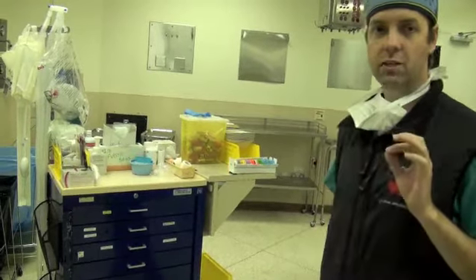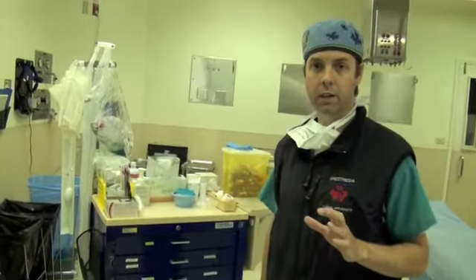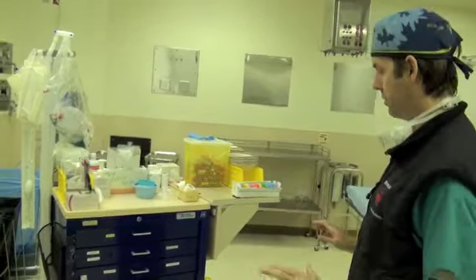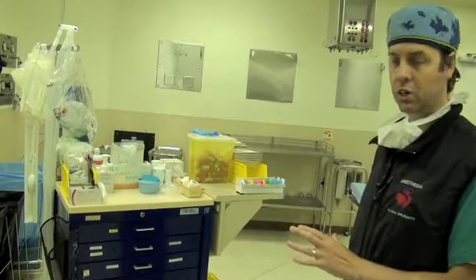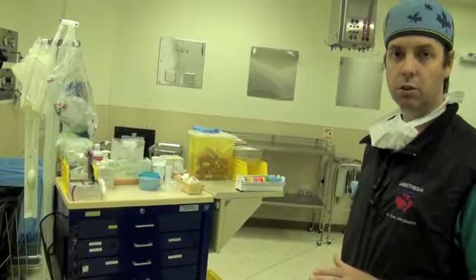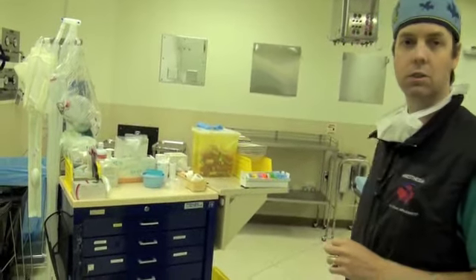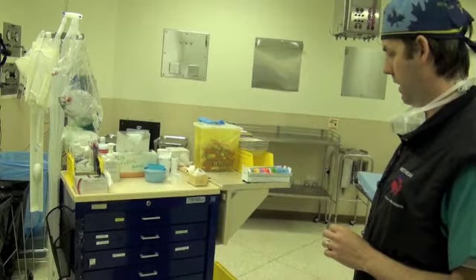First thing to note is, I guess, that the cart is different at every location that you'll be at. However, there's probably some common themes, and of course, me working in Vancouver General Hospital, I'm familiar with VGH's carts, so we'll be walking through that. I would suggest you take a moment, though, at your facility to go over your cart and see what the differences and what the similarities are between what I explained to you today and what your cart is at the location that you are at.